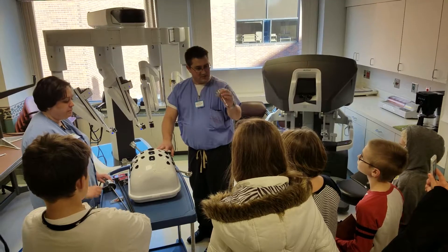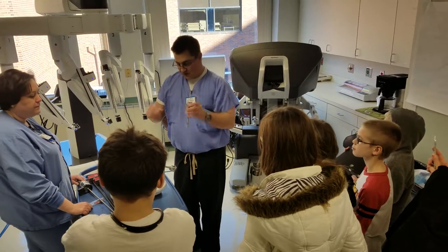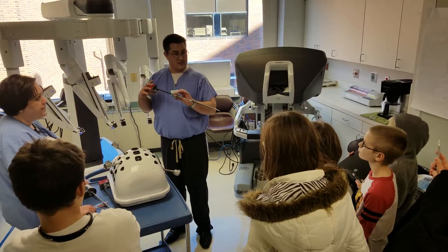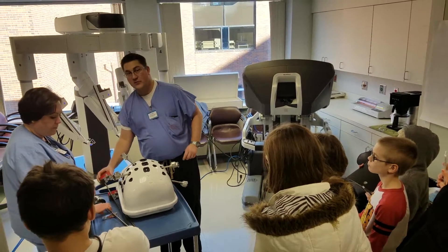These are called cannulas because you can see through there — there's a hole. That's what our instruments will slide through once we get it docked to the patient. So it's basically a portal to the inside.